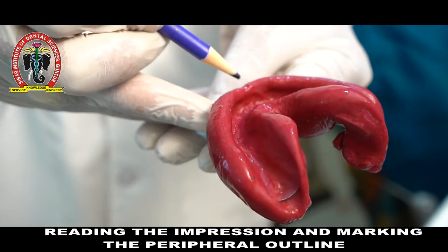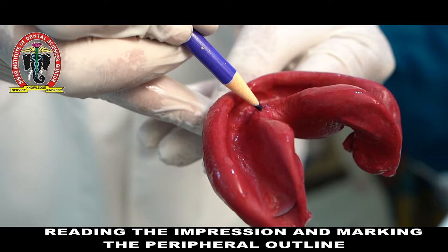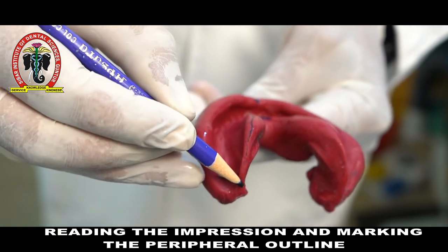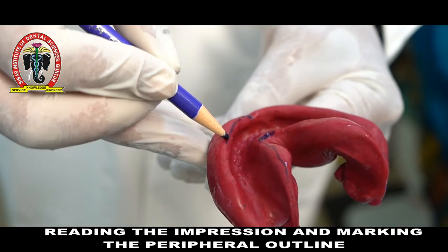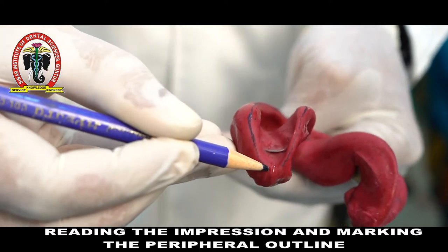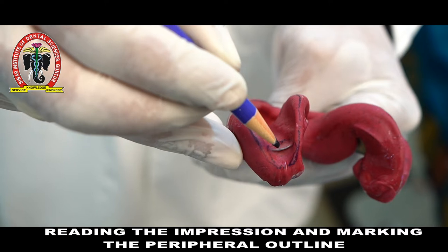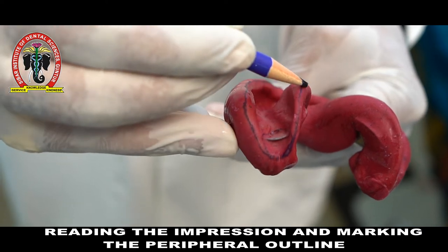Read and interpret the impression. You will see the labial notch in relation to the labial frenum, then the lingual frenum area with a lingual notch, and an S-shaped or inverted S-shaped lingual flange in relation to the lingual vestibule, then the labial and buccal flanges, and the distobuccal corner. There is slight exposure in the retromolar pad area — the tray length is not adequate and is not completely covering the retromolar pad, so during secondary impression making we have to take care of this.